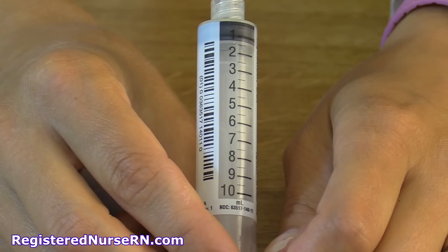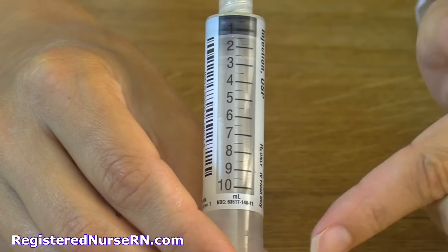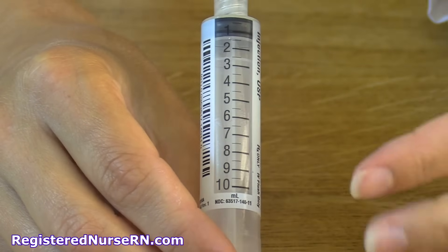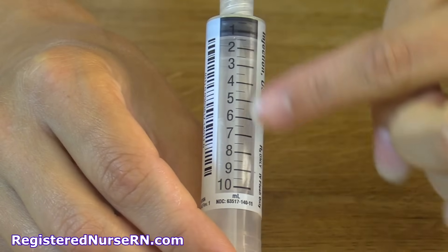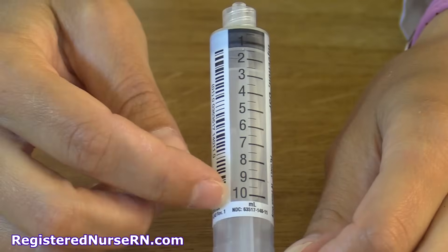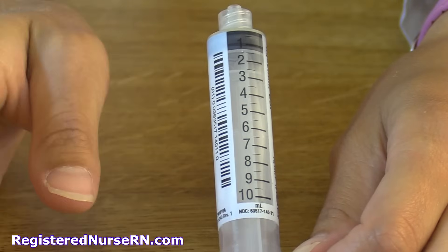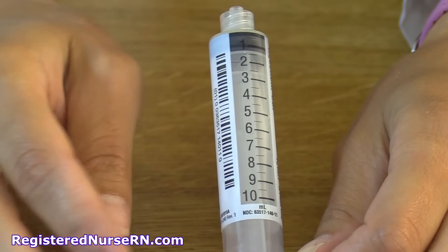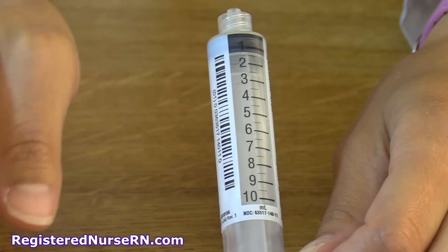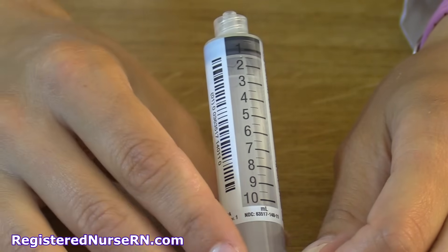Let me show you the basic parts of a syringe. Here is a basic 10 mL syringe. Anytime you have a syringe, you always want to look at its total capacity — this one holds 10 mLs. As a side note, 10 mLs is the same as 10 cc, so if you hear someone say 'let's give 2 cc,' it's the same as 2 mLs.